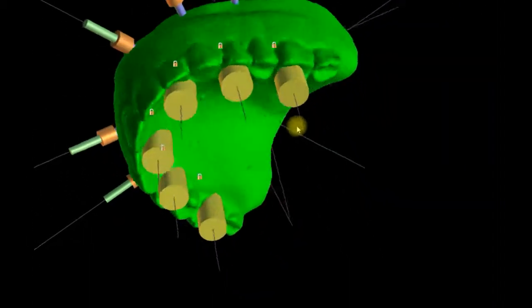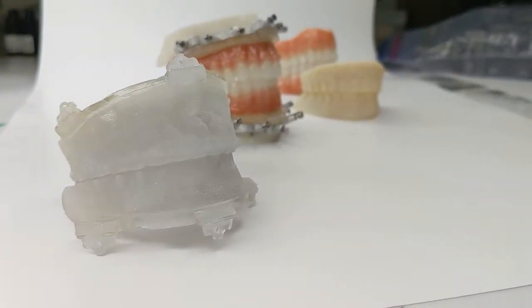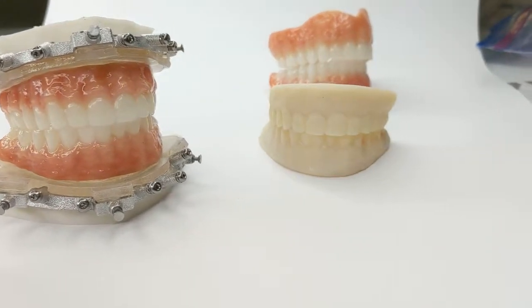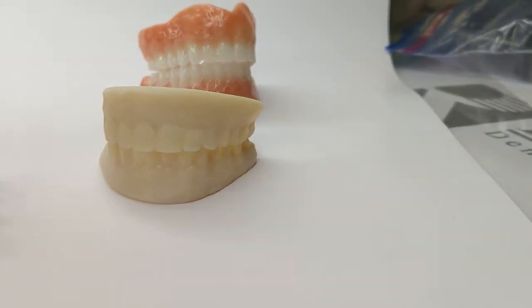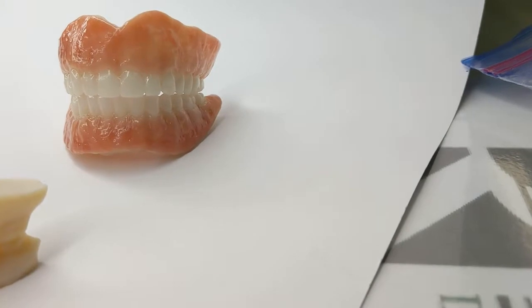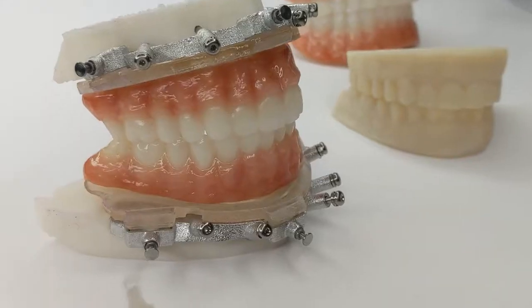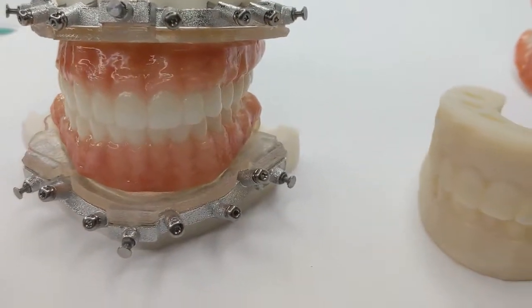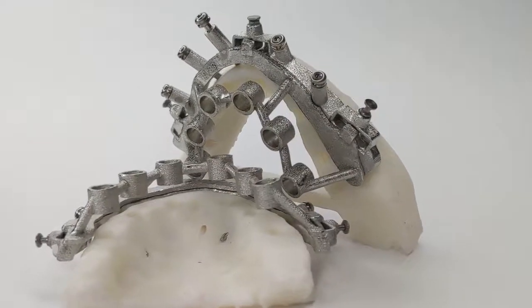Once the online meeting is finished, we will take 10 days to fabricate the chrome guided smile for surgery. This case shows the pin guide as the first image and the surgical prosthetic as the second image. Here are the rapid appliances and the backup dentures. The doctor wanted conventional dentures as one backup, but also milled PMMA dentures. And here are the osteotomy guides and fixation bases.